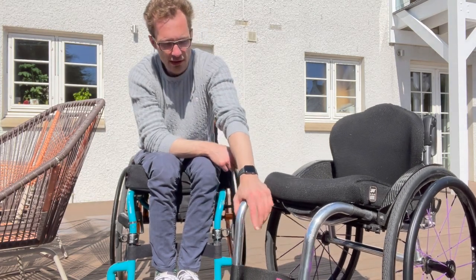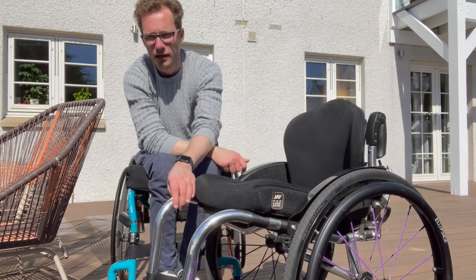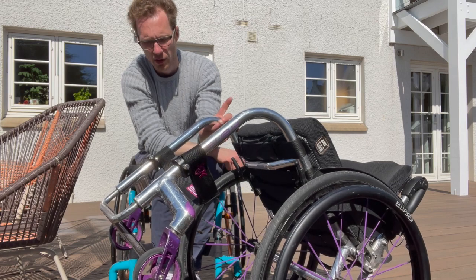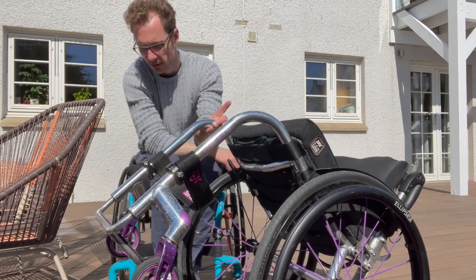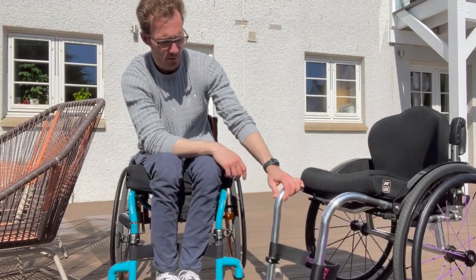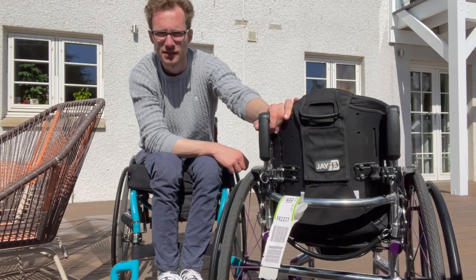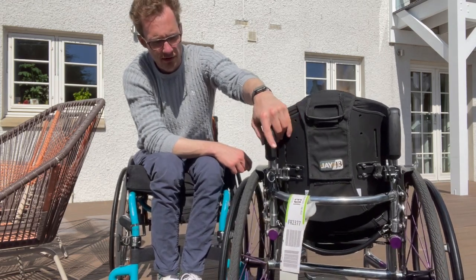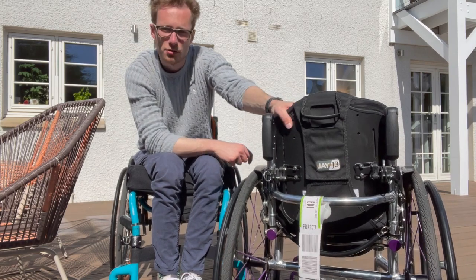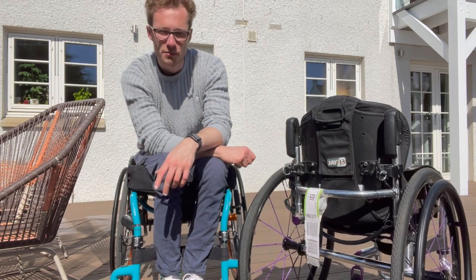You can customize certain parts of the chair — I've gone with a purple accent on the casters, caster arms, and the wheels, as well as some bits on the back of the chair. I recently flew with the chair with no issues really — in fact I often see the baggage handlers pick it up and be surprised at how light it is.